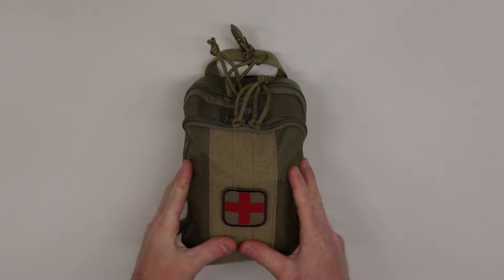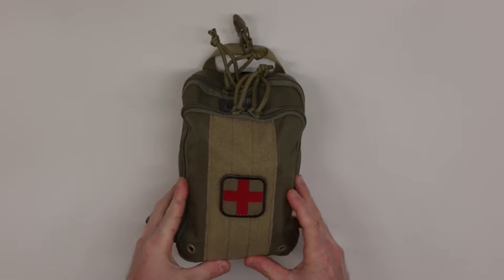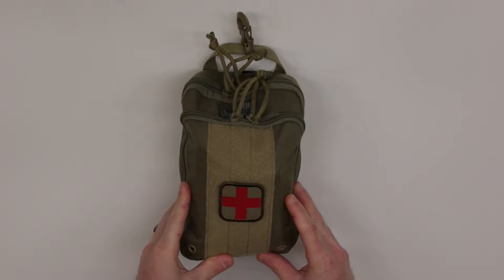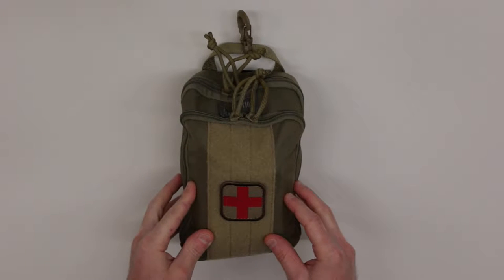So what I'd like to do is go through my medical kit to give you some ideas in case you're wanting to start your own kit. Starting with the outside of this particular pouch, this is a Maxpedition Zip Hook Pocket Organizer, extra large size. They also make a small, medium, and large, and I'll explain as we open up the contents why I like this particular size best.